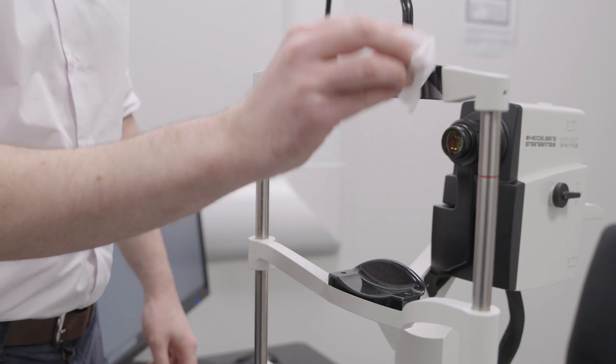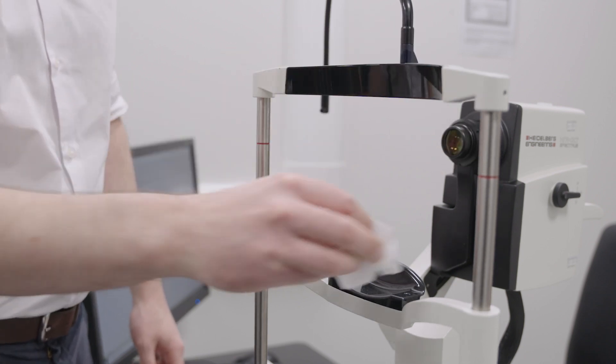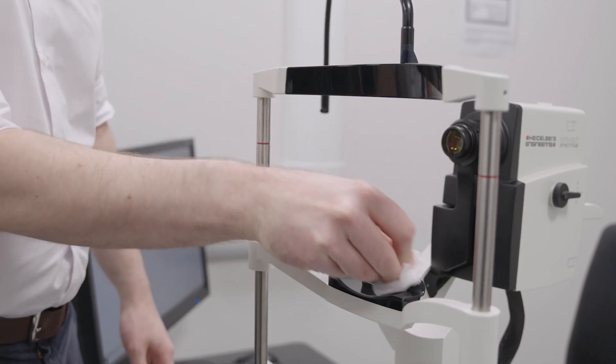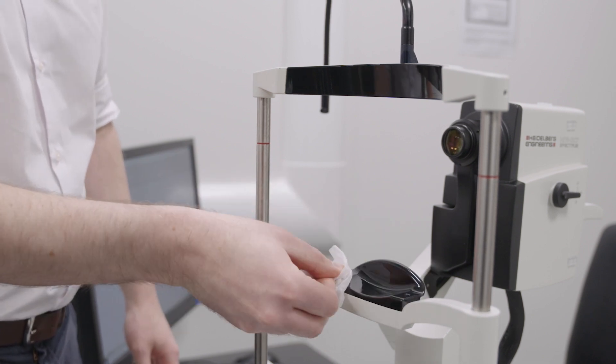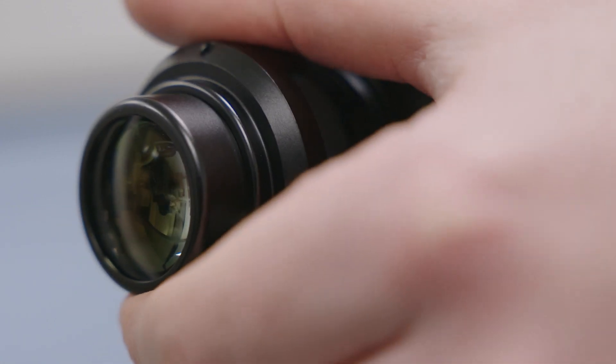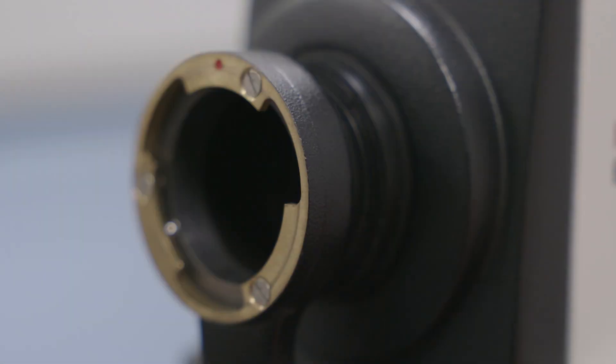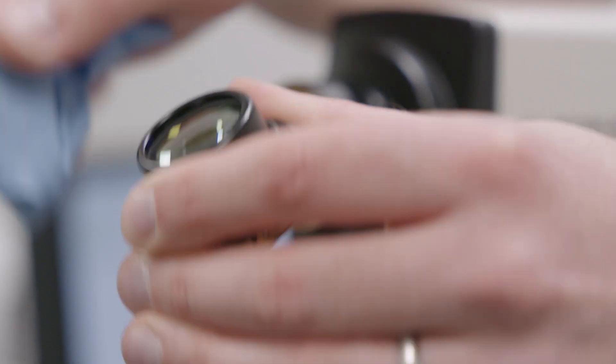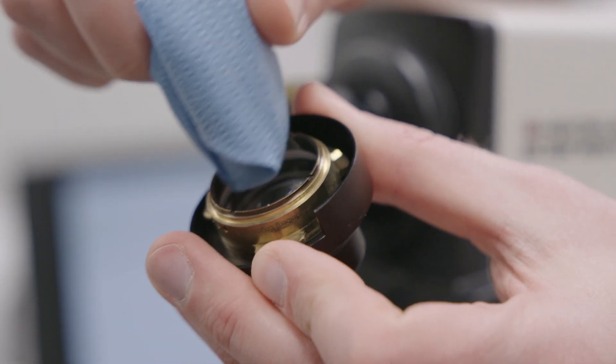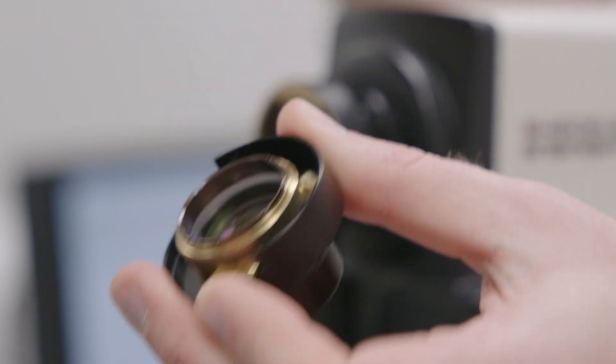Room and Device Setup. Alongside standard equipment cleaning procedure, it is important to ensure that the lens is free from dust and other contaminants. After removing the lens from the camera head, use a clean lens cloth to gently polish both sides of the lens. Do not use alcohol wipes or other chemical cleaners.